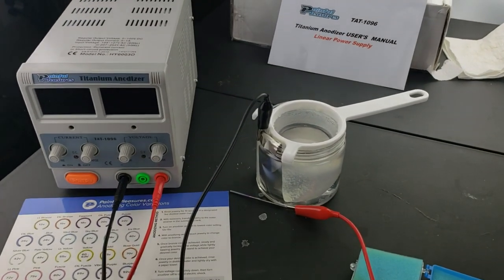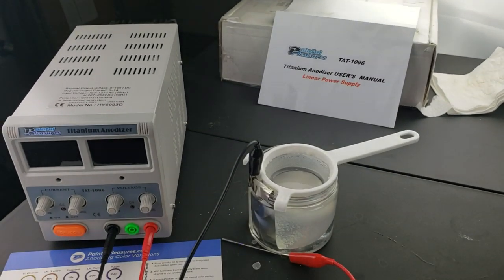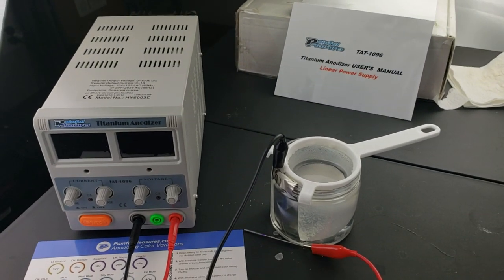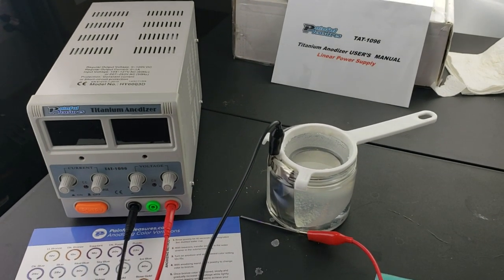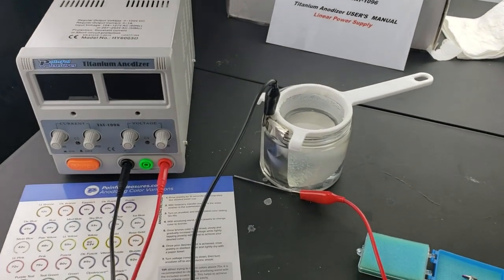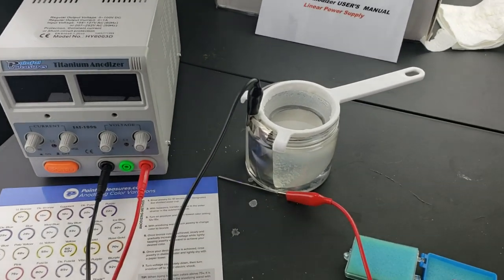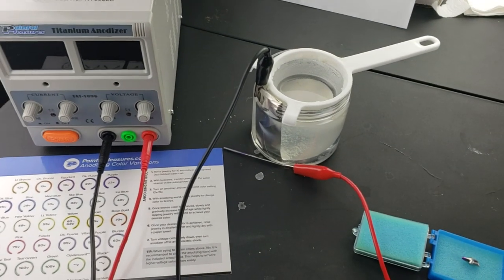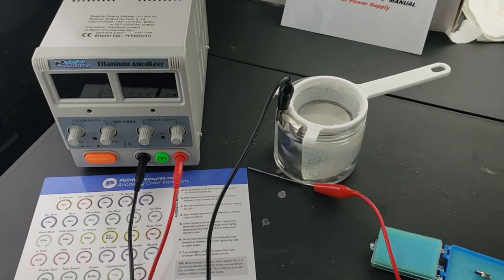Okay, doing a quick video here showing a piece of equipment I think is worth buying if you do many implants at all. This is a really low-cost investment that can give you nicer results with your custom abutments and help them blend in better and more aesthetically.